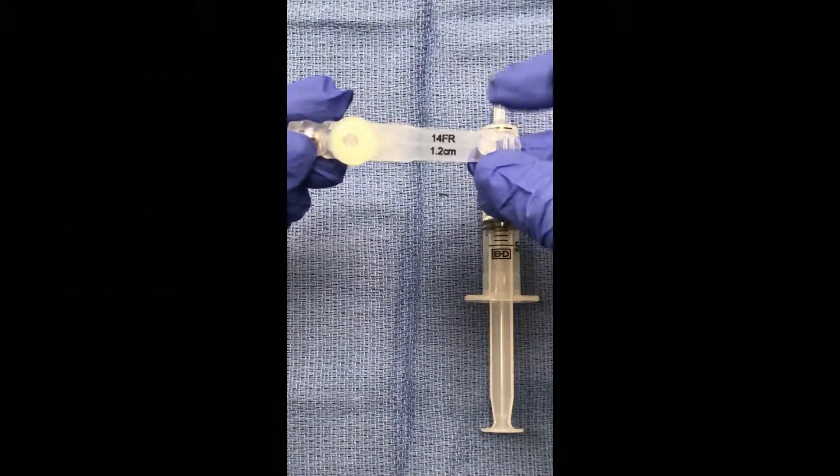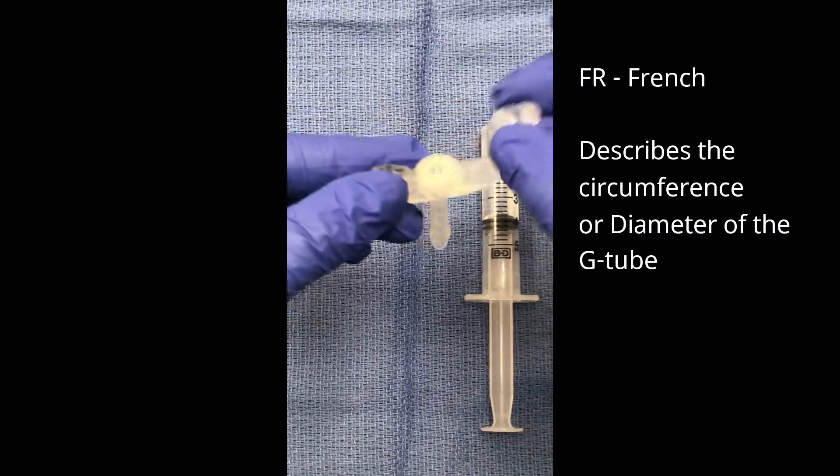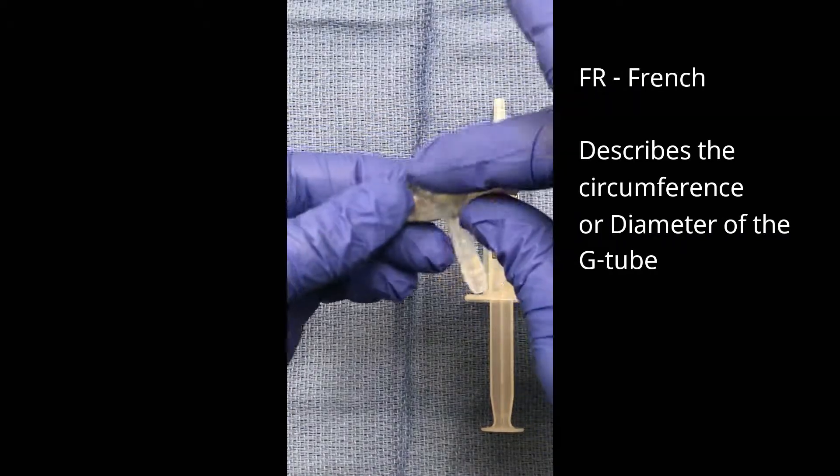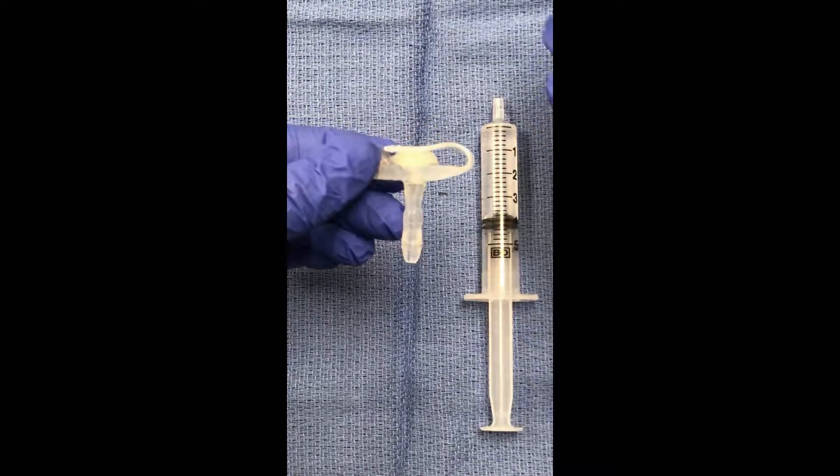This one is a 14 French 1.2 centimeter. 14 French describes the diameter and 1.2 centimeters describes the length.